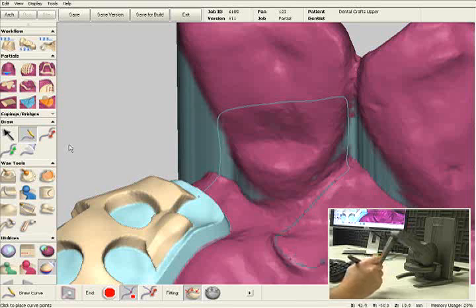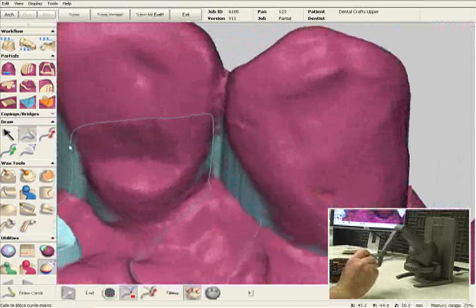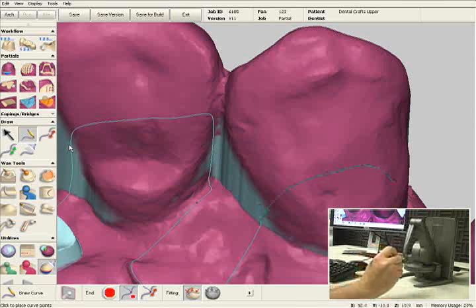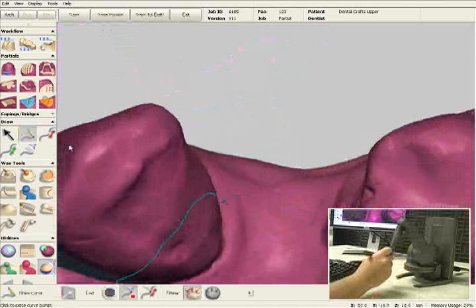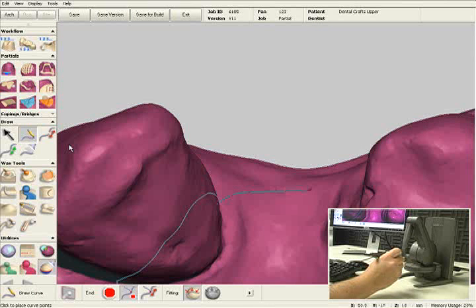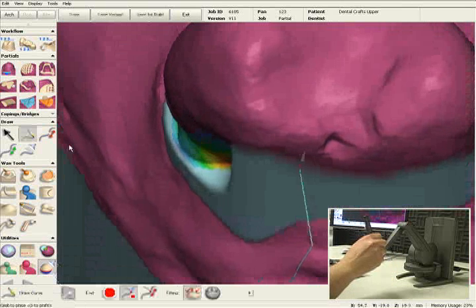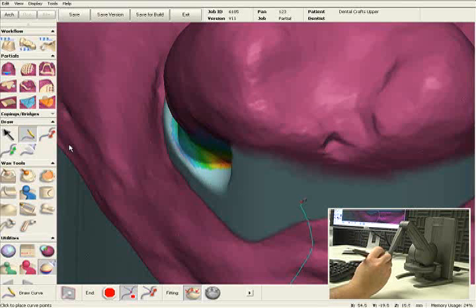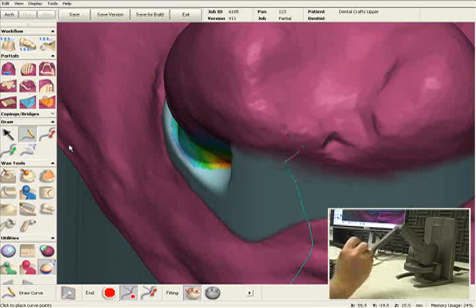I'll pop through to the inside of this bead line, and I'll also have a lingual plate on this canine. In this area, I'm going to have a post for tooth number 12. You can also add a pontic if you'd like, and then add some retention beads if you wanted to make a composite overlay on a metal dummy — that's completely in your control as well.